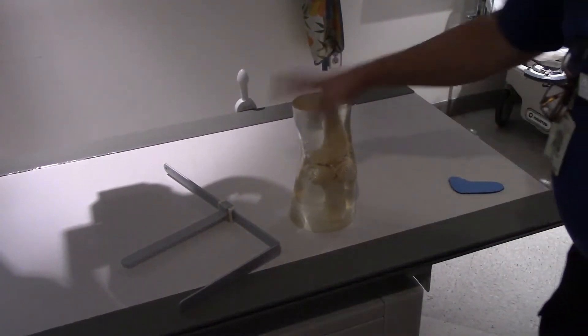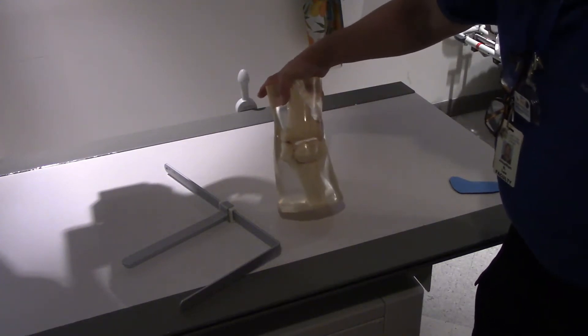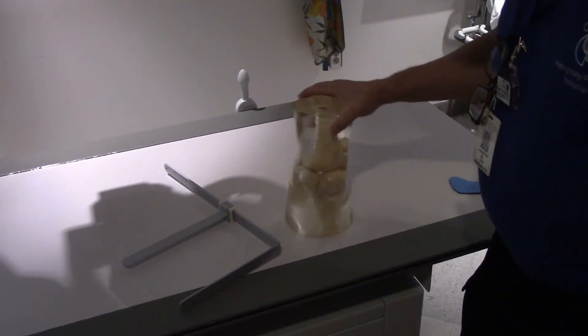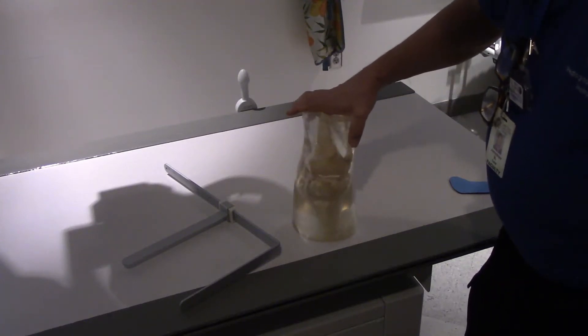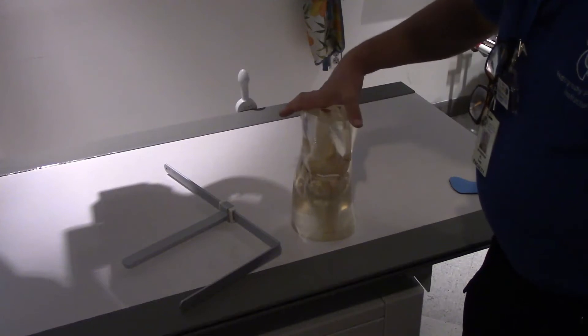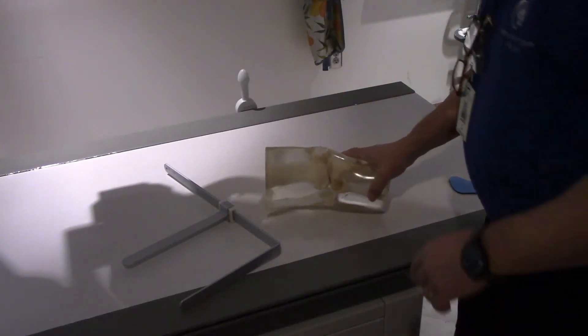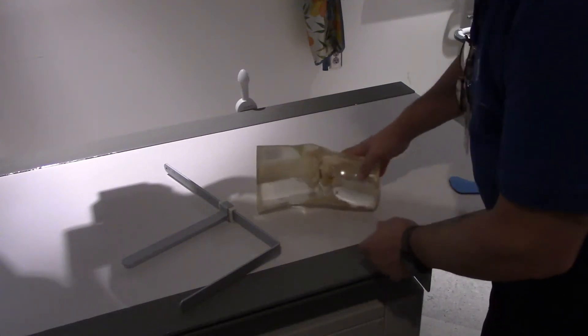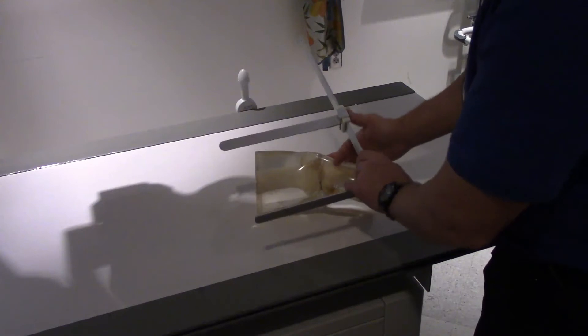What we have here is a crystal knee phantom and this is actually human bone. We were kind of lucky. Some of the phantoms we have in our lab were bought years ago and they actually have human bones in them instead of synthetic. Oldies but goodies. Here's my knee phantom.